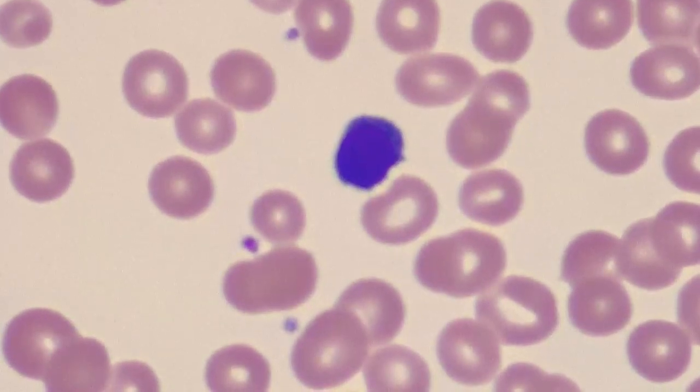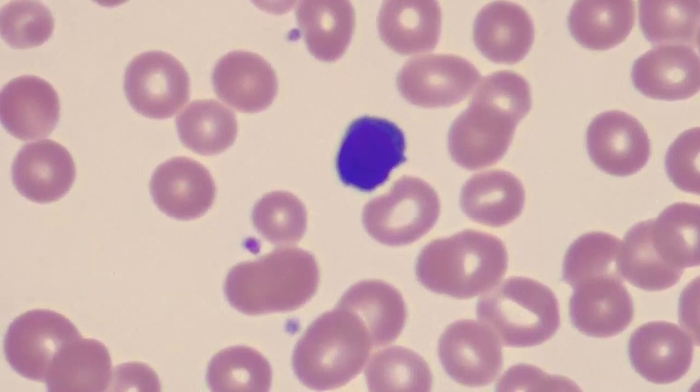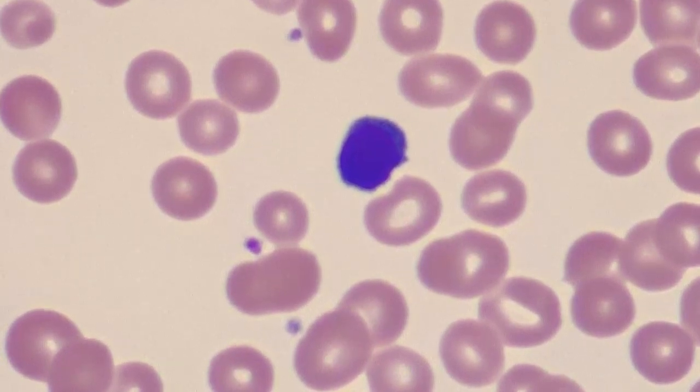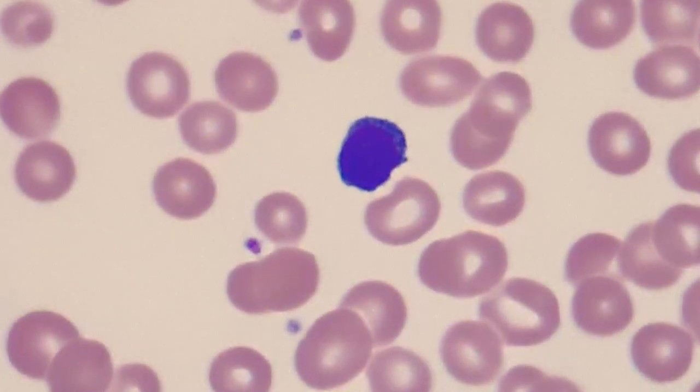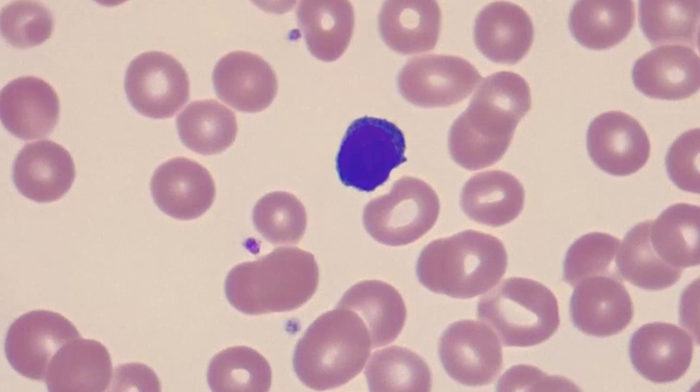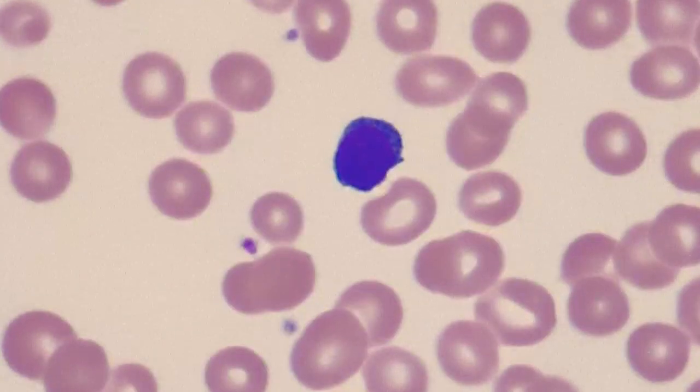anisocytosis. And that brings up a very good point of why, despite all the advances in automation and instrumentation in the laboratory, which are hugely helpful and have changed medical laboratory science, the human eye is always going to be the go-to when the instrument doesn't quite live up to every expectation, which it can't. But they do a lot. But the human is always going to be needed.